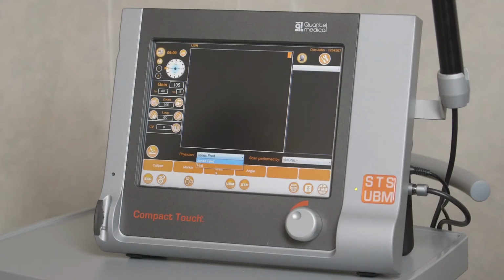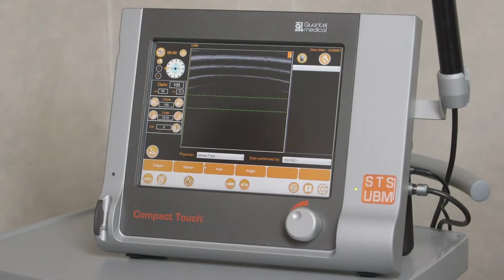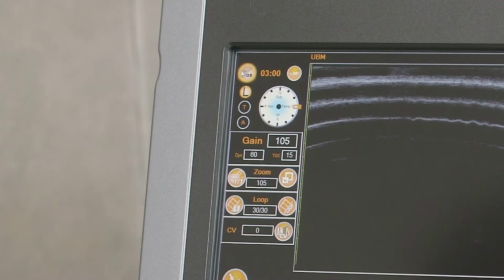If desired, select the foot switch button in the bottom left corner in order to start or stop image acquisition using the foot pedal. Use the OD/OS icon to select the eye to be examined and choose from L, longitudinal, T, transverse, or A, axial for basic probe position. For longitudinal and transverse scans, probe position on the conjunctiva peripheral to the cornea can be labeled using the clock hour. The +30 button indicates a shift clockwise by 30 minutes.